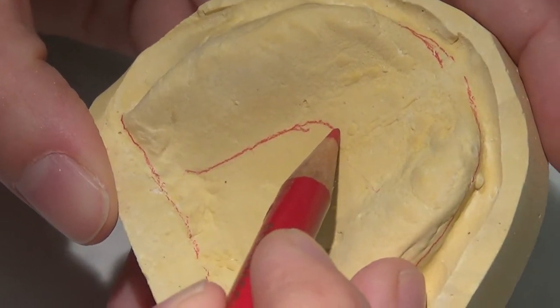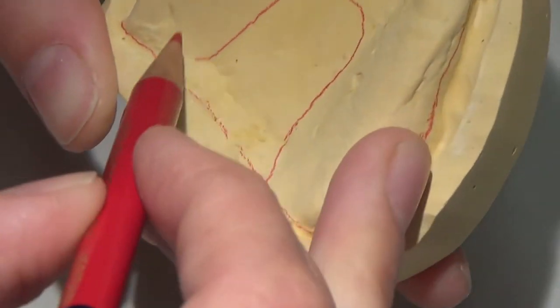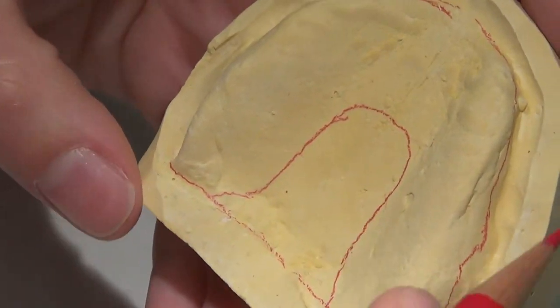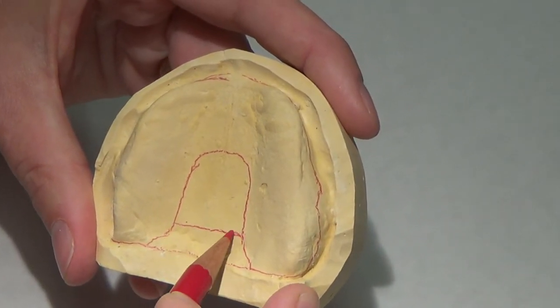So there's my maxilla. I'm going to draw my palatal stop. And I'm going to make it pretty large on this patient because I can.